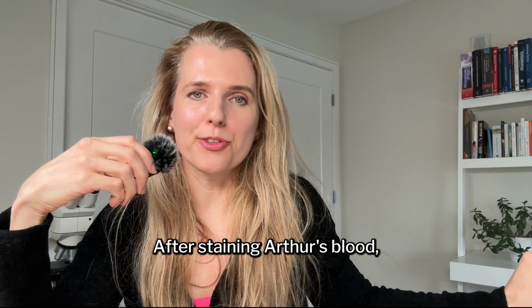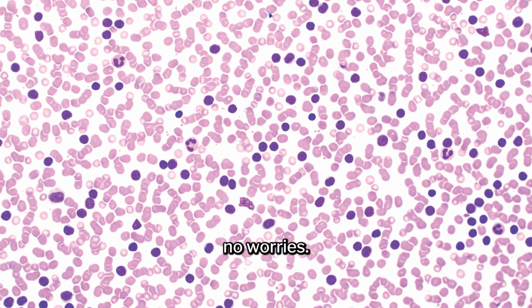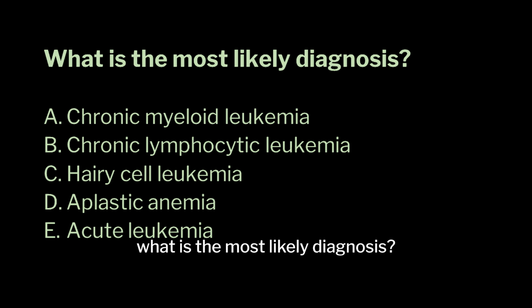After staining Arthur's blood, here's what the slide looks like. If you have no idea what you're looking at, no worries. We will study some normal blood first before we study Arthur's blood to answer this question. What is the most likely diagnosis? You can pause here to decide if you'd like.